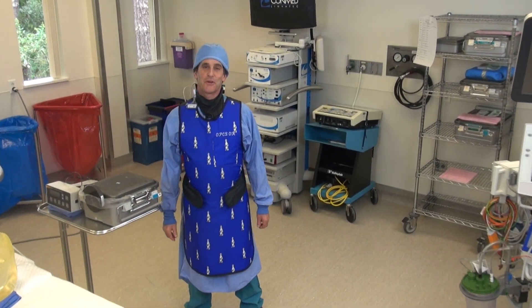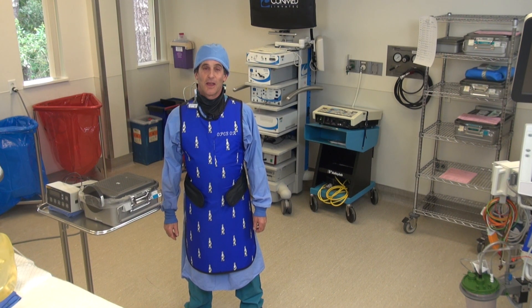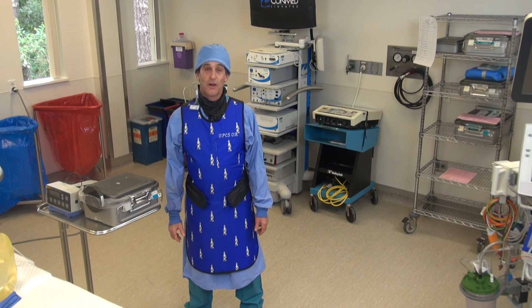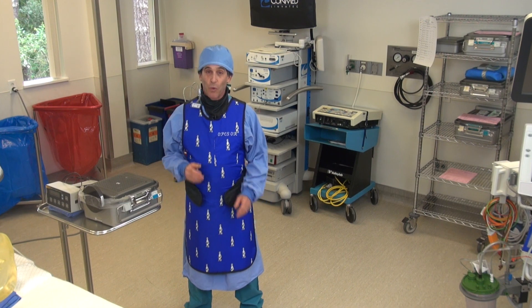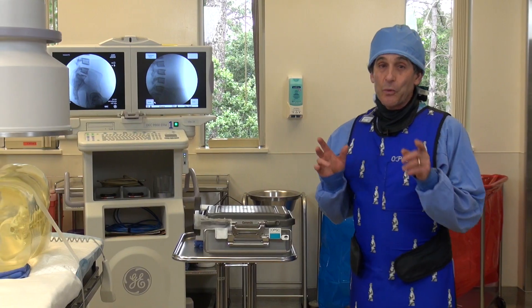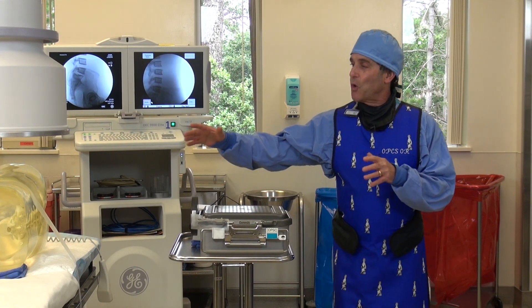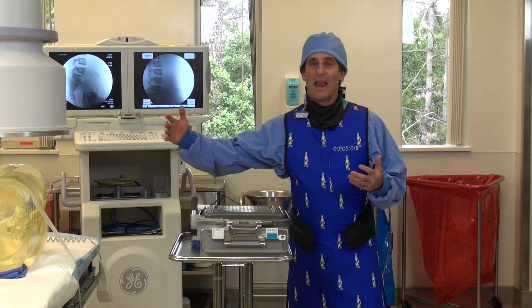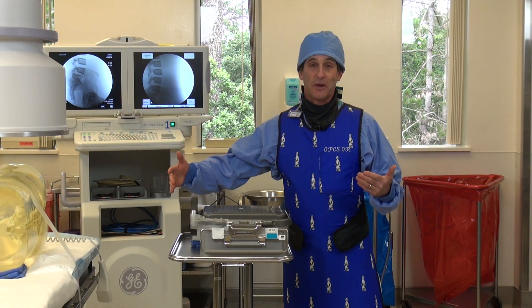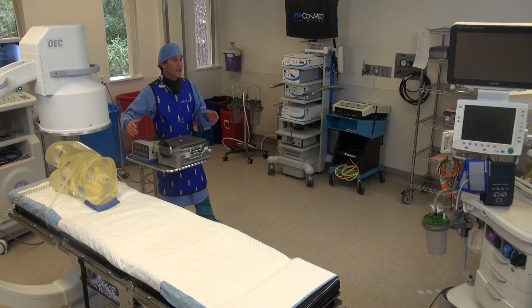Now we're going to show you the inverse square law. The reason we're doing this demonstration in the OR is because we wanted to do it with a C-arm. And the reason we're doing it with the C-arm is because there's no lead hanging to protect you, like there is in every R and F room for sure.